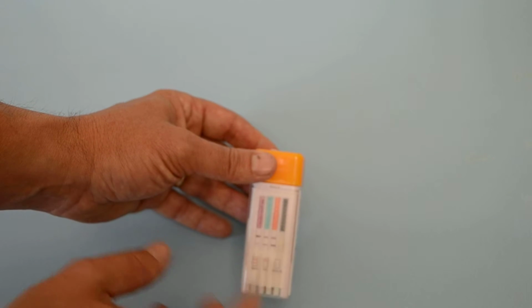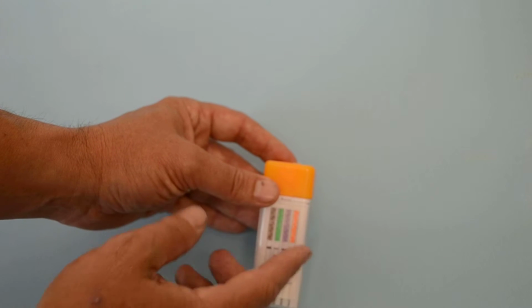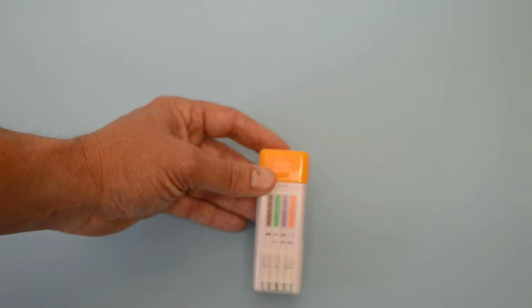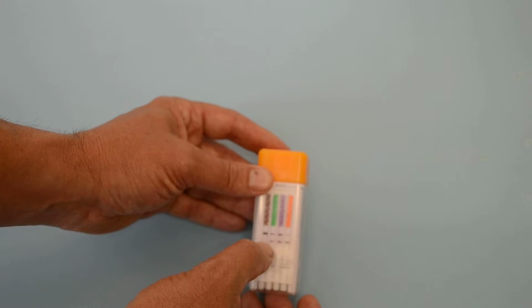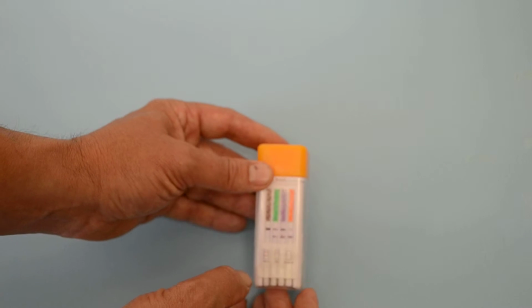Here we've got negative results for all 3, negative results for all 4 on this aspect, and here we have actually got negative results for all 4 on here. But interestingly, on this sample, the cannabis test line is extremely thin and faint, and actually only shows, with an eye of faith looking at this, I don't know whether it's going to show on camera, but to almost a quarter to a third on the right aspect of this test membrane. You can just see the membrane there.